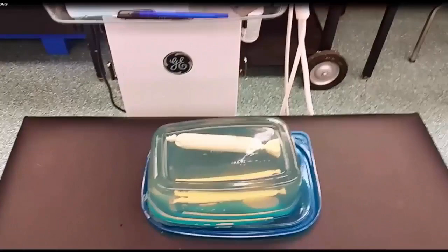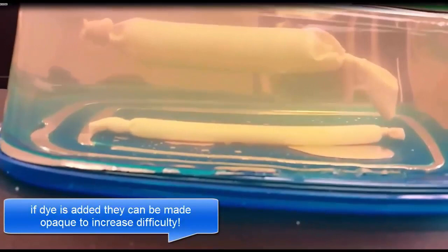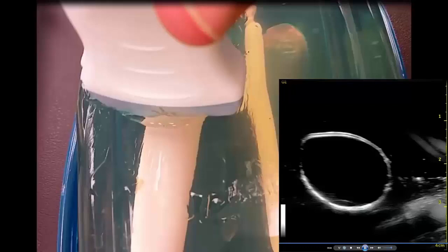Now let's do some real scanning. We're going to use the high frequency probe, the GE Venue 40 system, and a homemade ballistics gelatin phantom. I've embedded two structures into this block of gel — both Penrose drains: a half-inch on the top and an eighth-of-an-inch on the bottom. With the transducer on the gel block, I'll start in short axis, then turn it into long axis, back into short axis, then into long axis again, and then back into short axis.